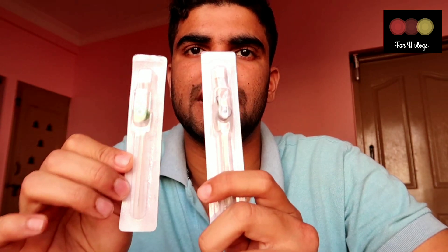In an emergency situation where a patient has lost a lot of blood, there is little time and you need to administer fluids and blood quickly. For that, larger-bore cannulas such as the green and gray sizes are used. In a hospital setting, blue and pink sizes are used when a patient needs fluids or a blood transfusion.